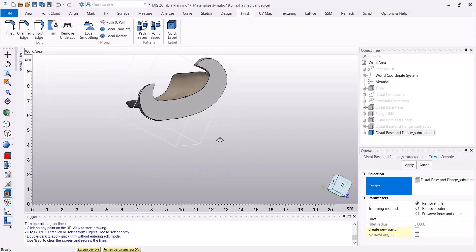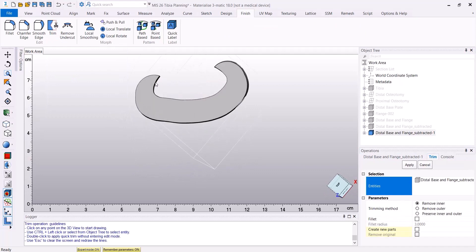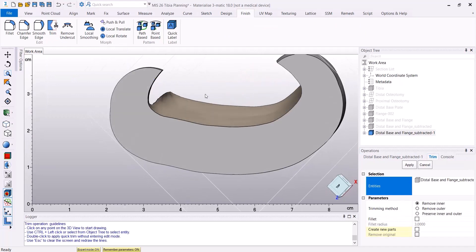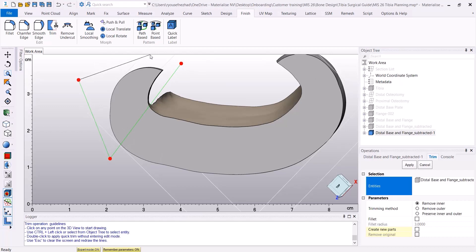Under the Finish menu, I'm going to use the Trim tool to trim the sides of the flange to make sure that I will have a perfect fit on my tibia.